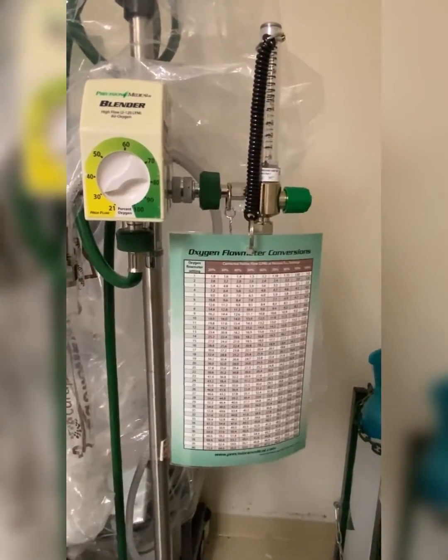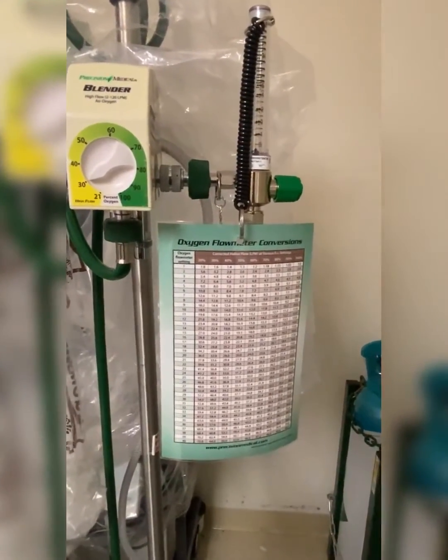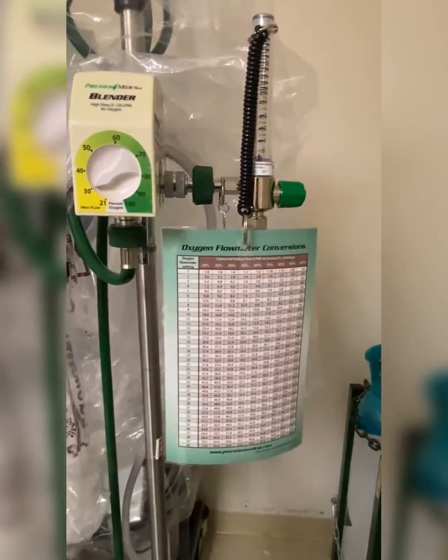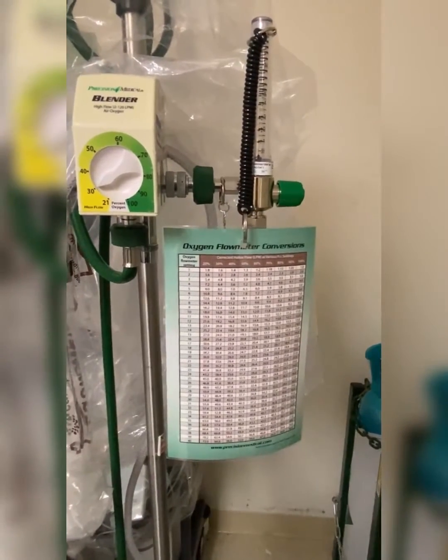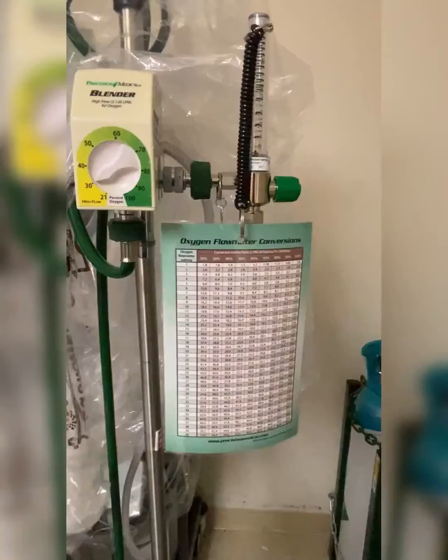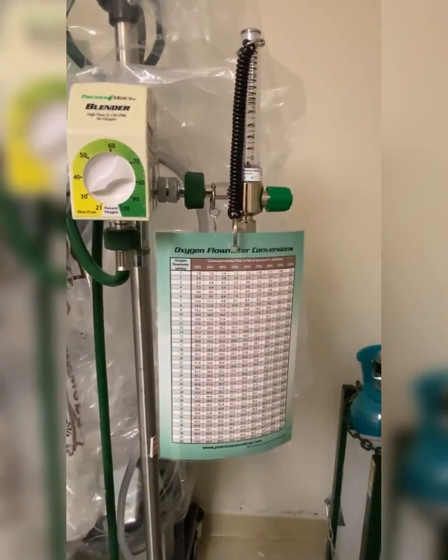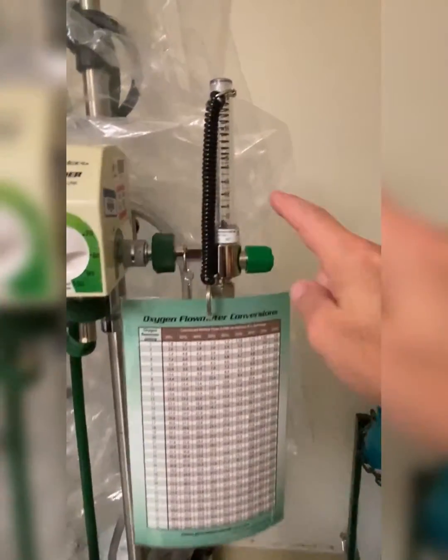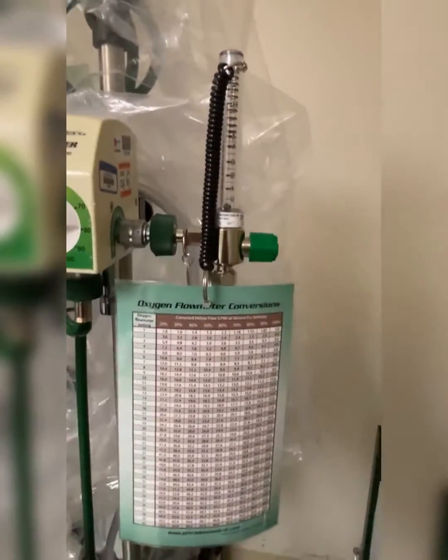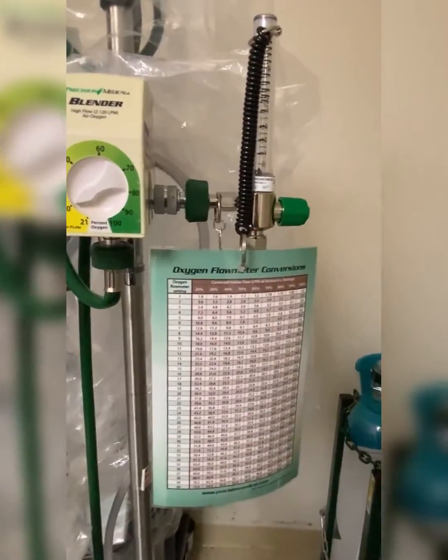Hey everyone, let's talk about how you use your oxygen flow meter conversions when your patient is on Heliox. When you're on Heliox, the flow is actually coming out much faster than your flow meter says. So if your flow meter says 15 liters a minute, it's actually coming out much faster. So how do you determine how much flow is actually coming to your patient?